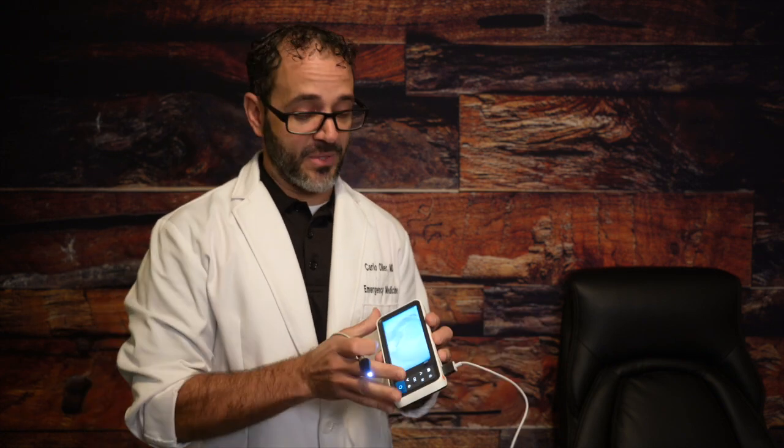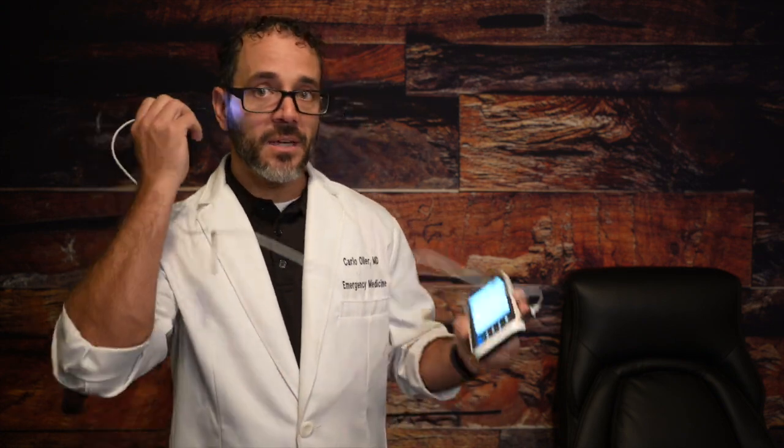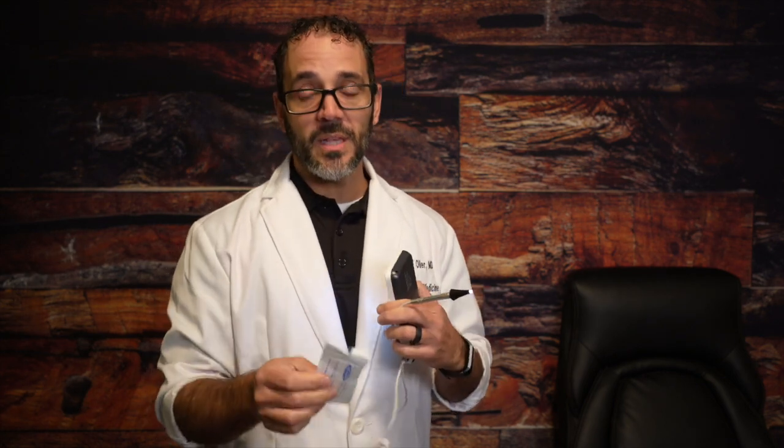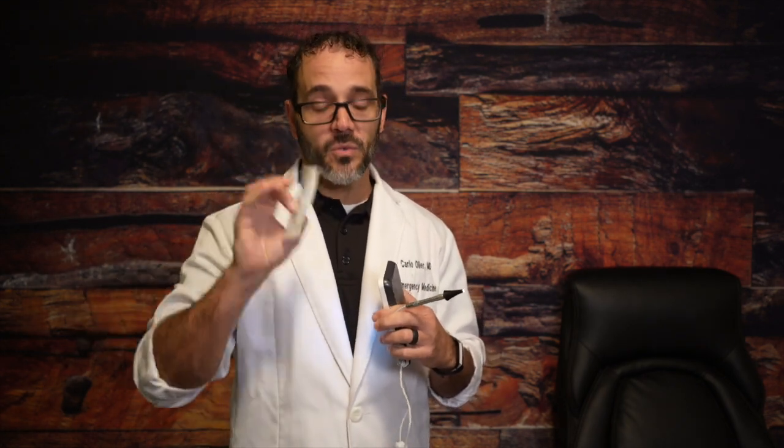Look how beautiful that picture is. So just imagine having this at the bedside, pull it out of your pocket, and show mom, show the patient, their ear infection, their foreign body, the little crawling bug. It even comes with a little device, so you can plug this in to the end of the light piece, and use it to remove wax or a foreign body out of the ear.